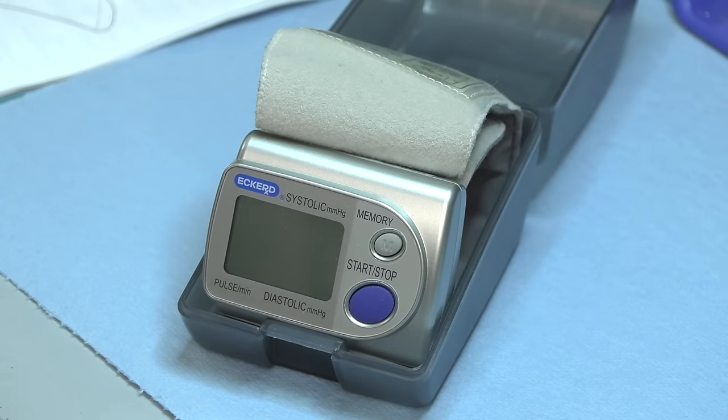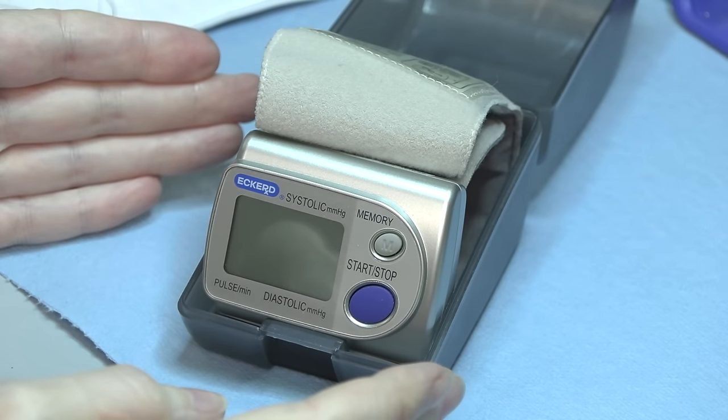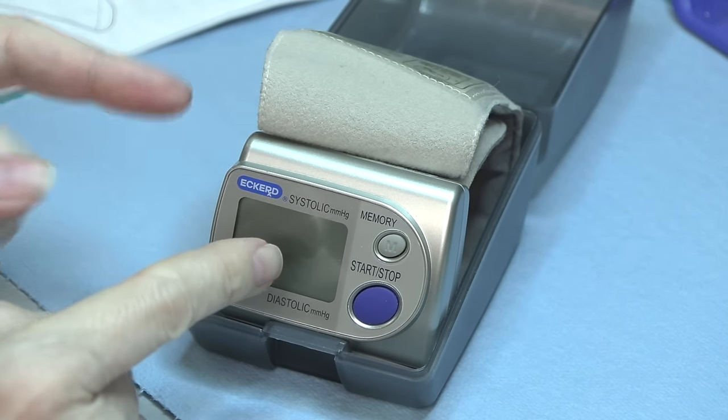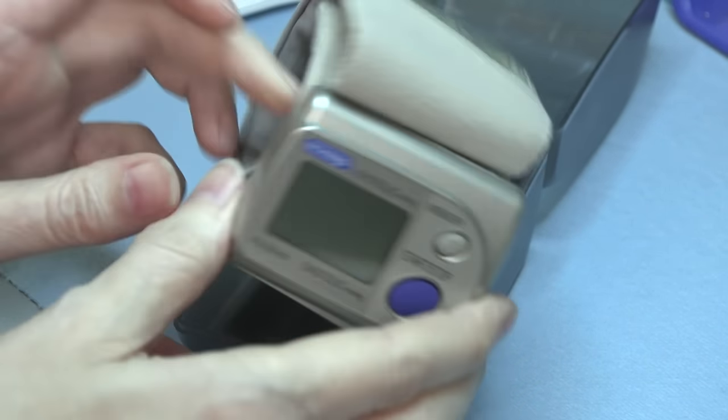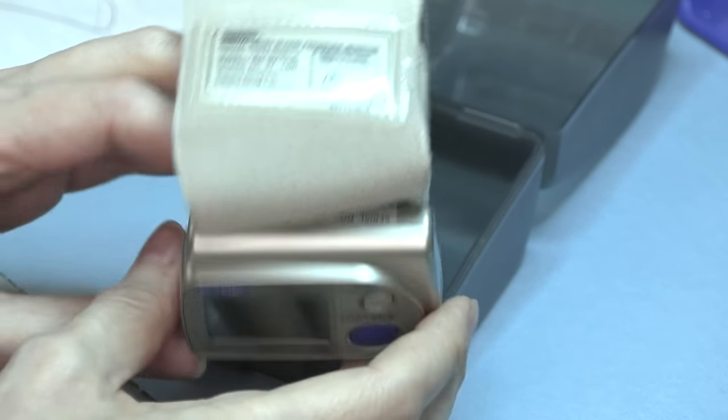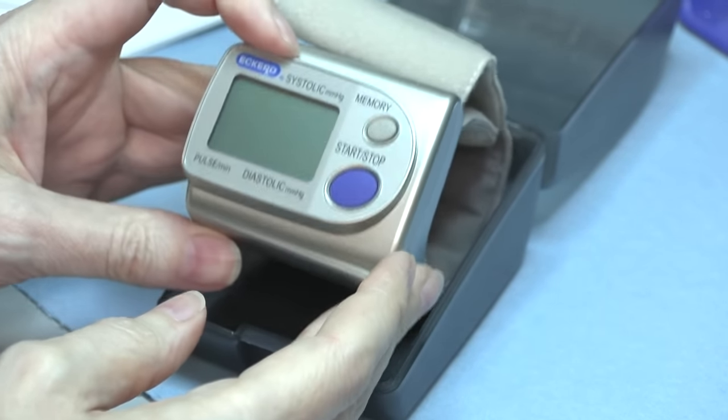Hey, it's Fran again at the bench with this little guy. This is my old blood pressure monitor, the wrist type. It's just gotten too old.